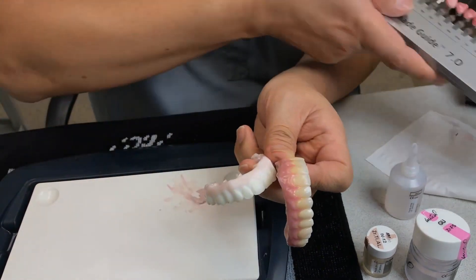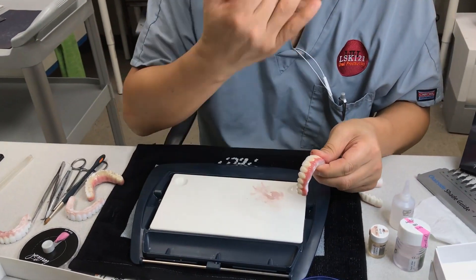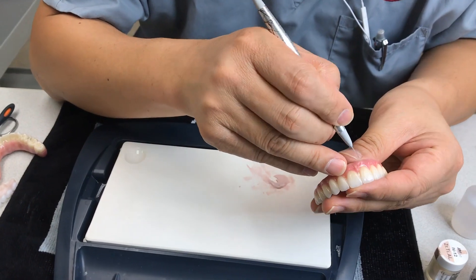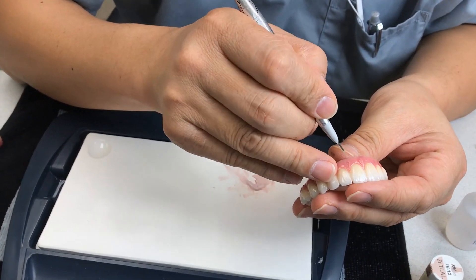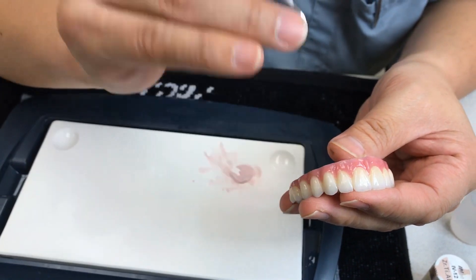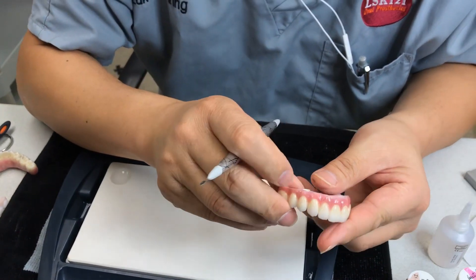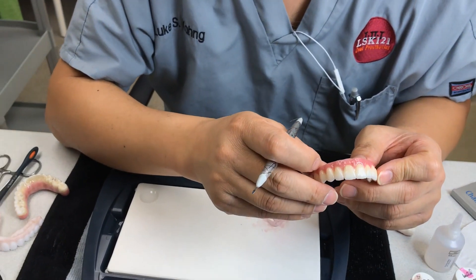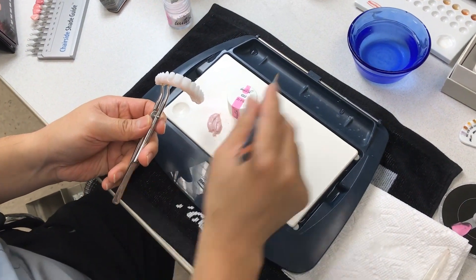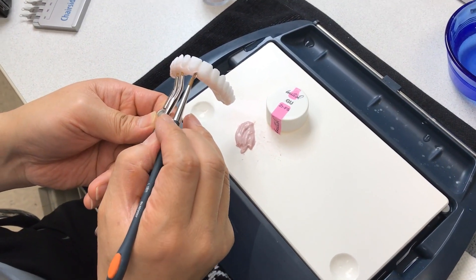It's gum five that you have on this orange — yes. I can mimic with this. But as you can see, it has a different color and different texture in between the teeth. As we create the aesthetic pink design, I also make the texture and coloring too. Next time I can add with that one — just mix with a simple gum color and on top of that pre-shading.